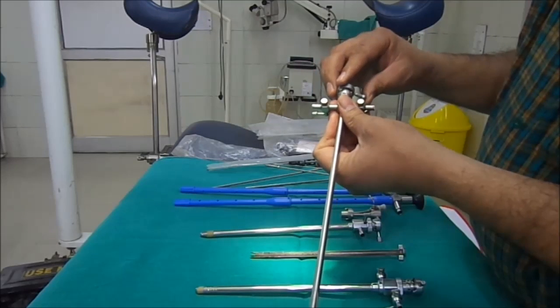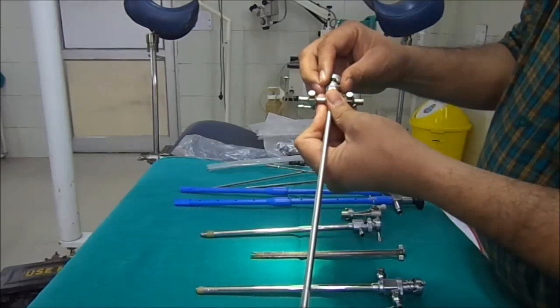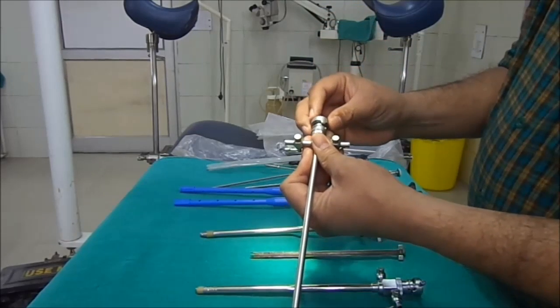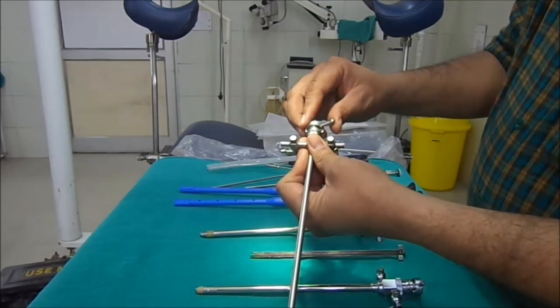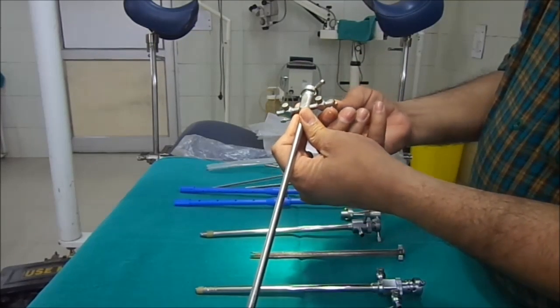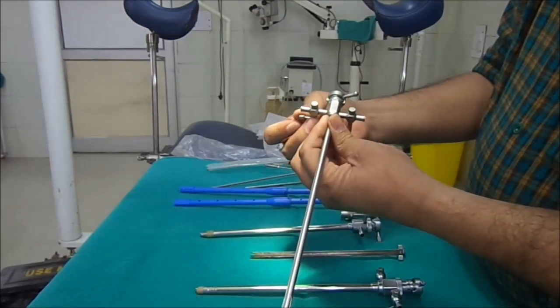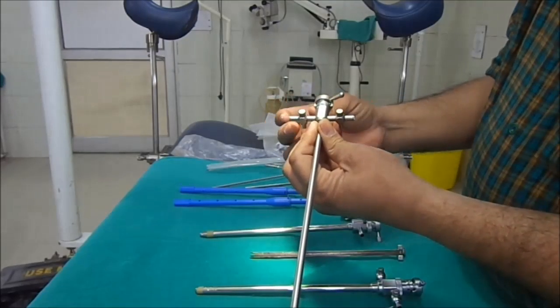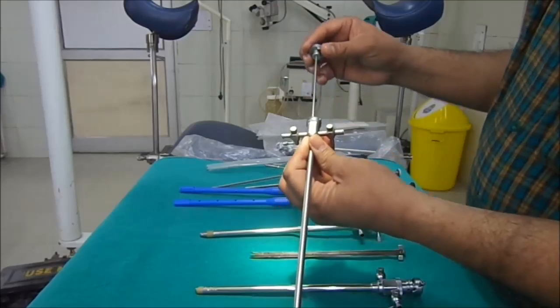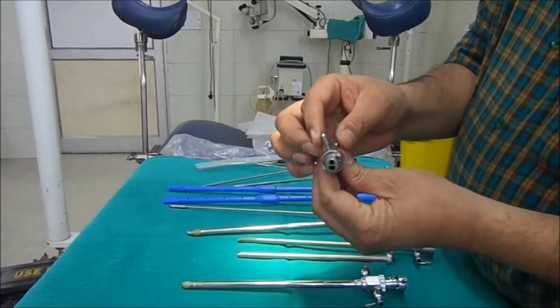The sheath is introduced into the urethra and urinary bladder, and all attachments including the bridge, telescope, camera cable, and light source are all attached to this sheath. It has two ports for the entry and exit of fluids, and they can be locked and unlocked.